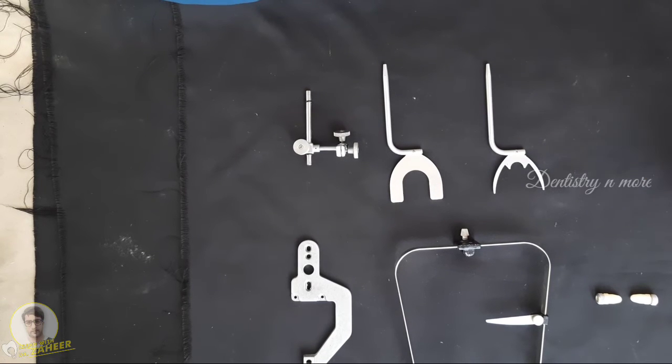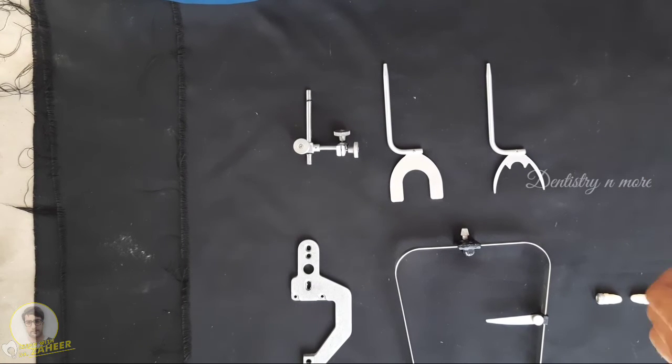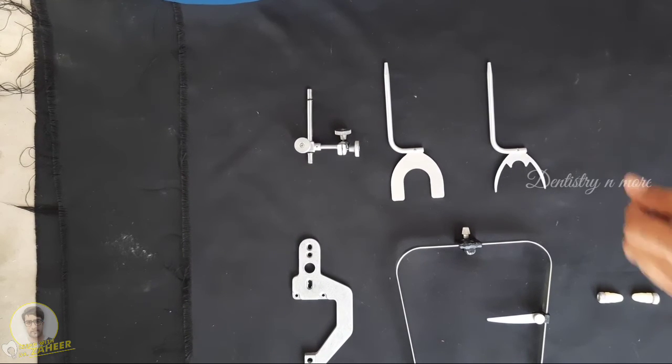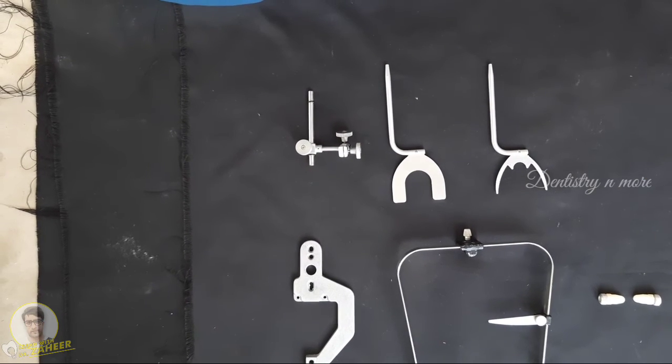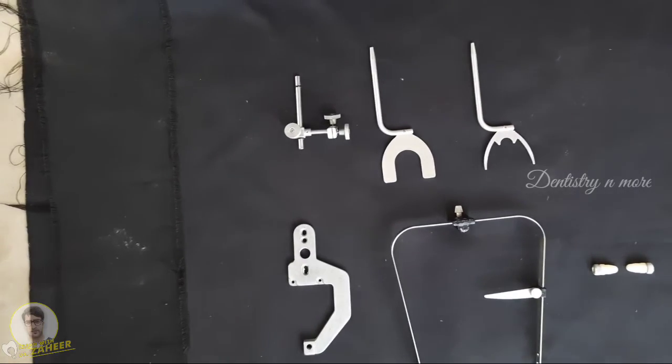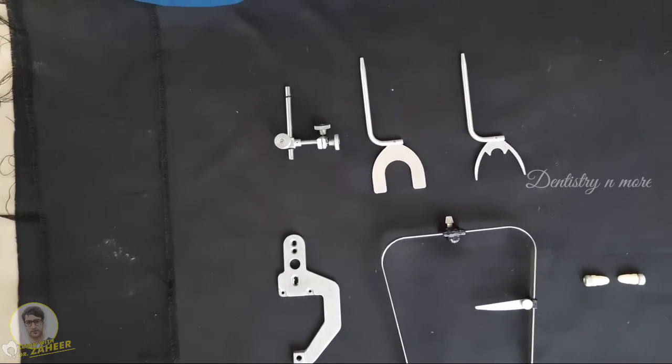These are the parts of the facebow. Next we'll be moving on to the transfer — how to attach the facebow to the patient and transfer it to the articulator.